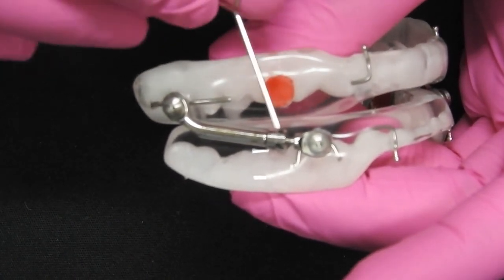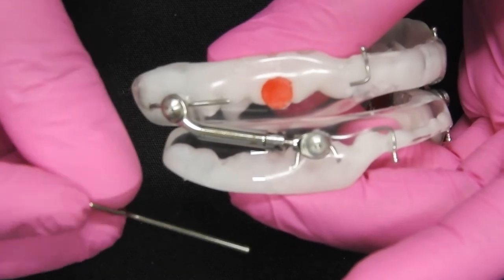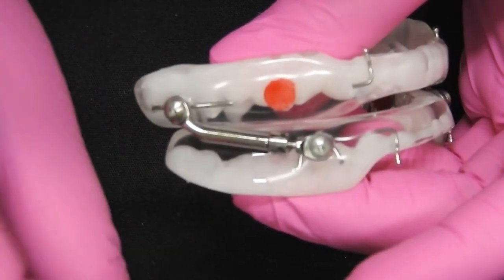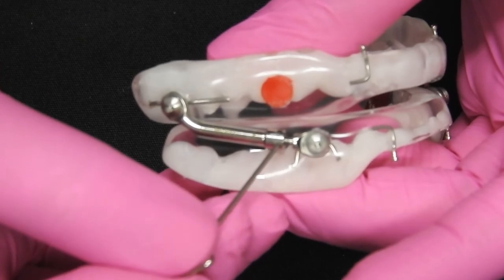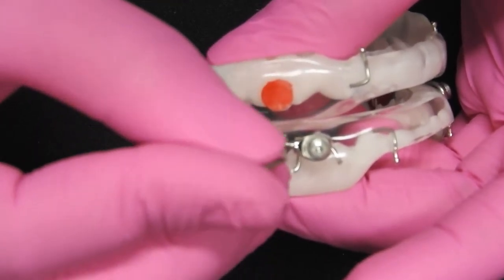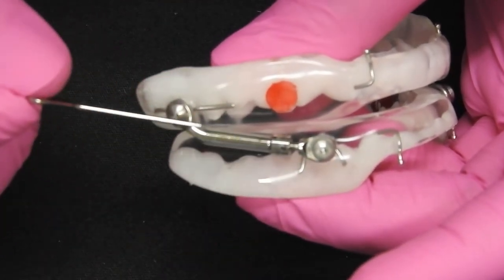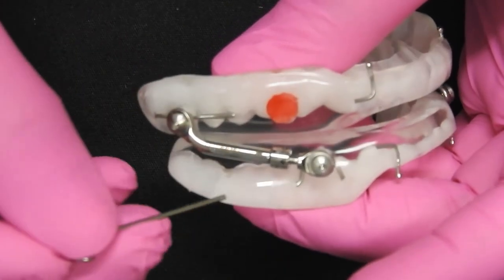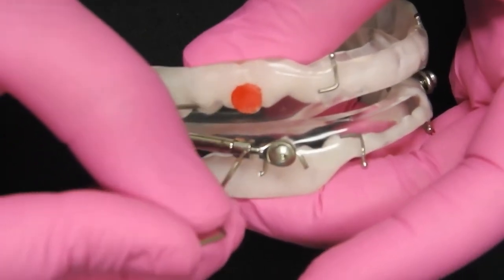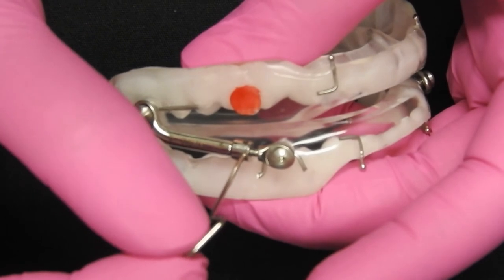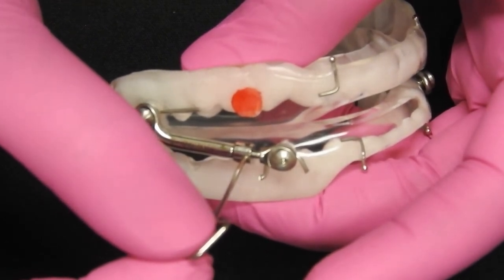Take your key that we have provided to you. Insert it directly into the keyhole that is in the middle of the arm, and turn 90 degrees towards the big red dot.